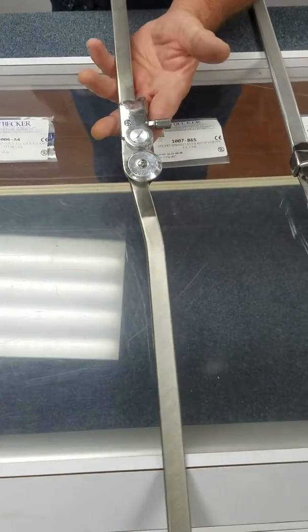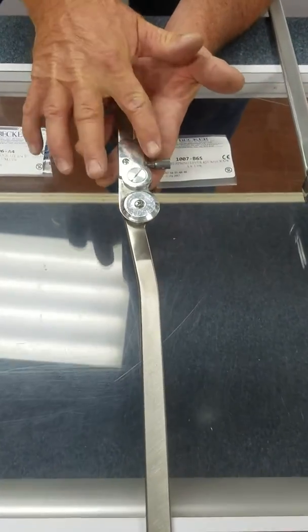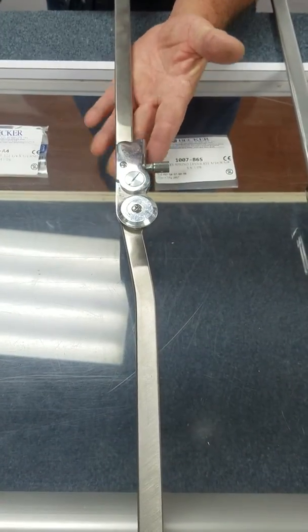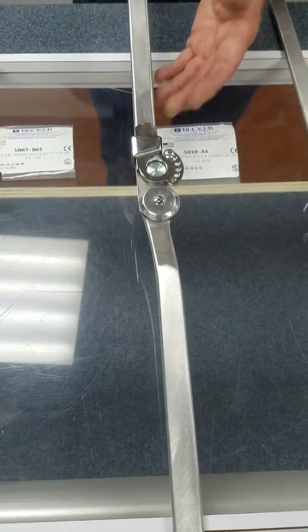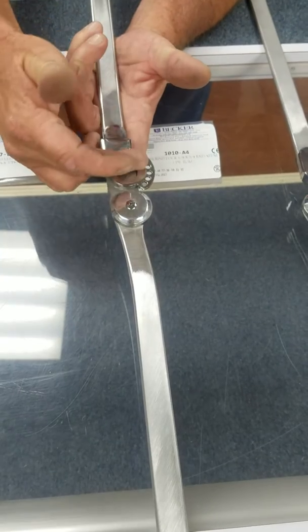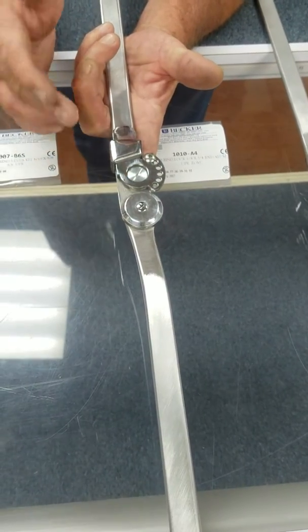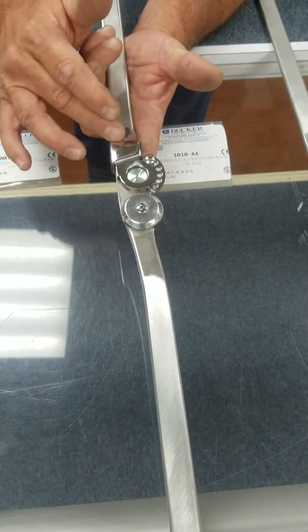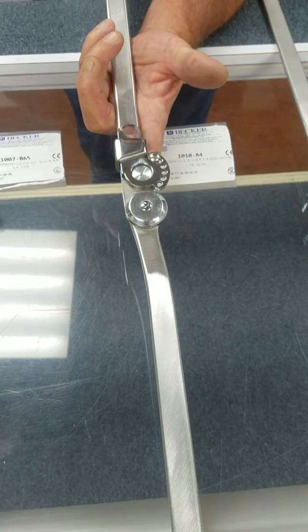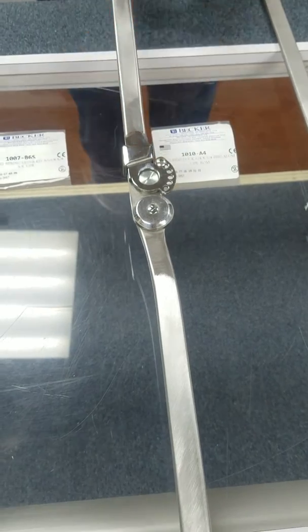Model 1007 is a bail lock with adjustable flexion. Model 1010 has a range of motion plate, adjustable flexion, along with a ring lock at full extension.